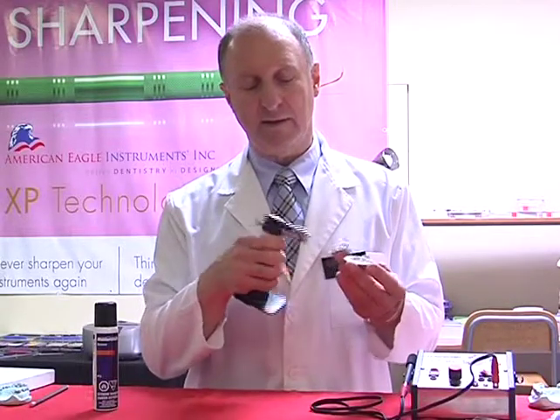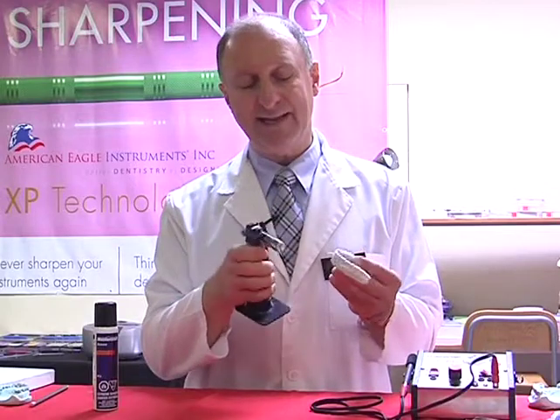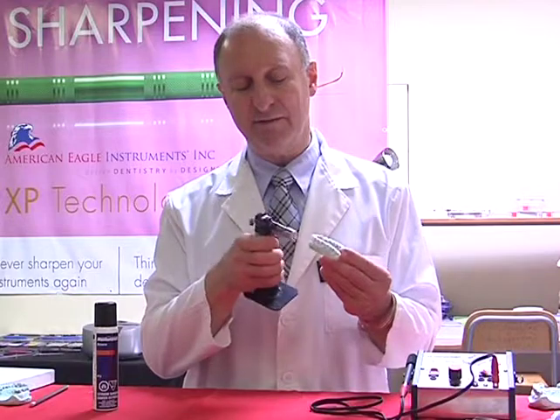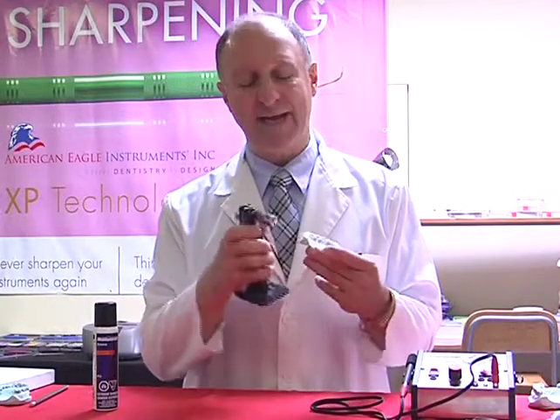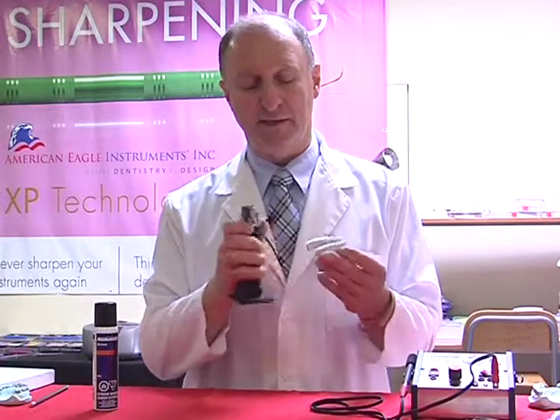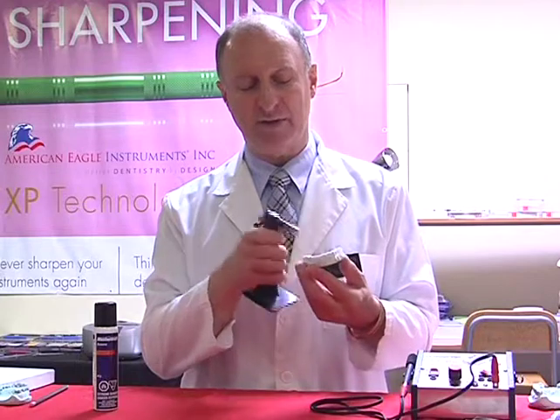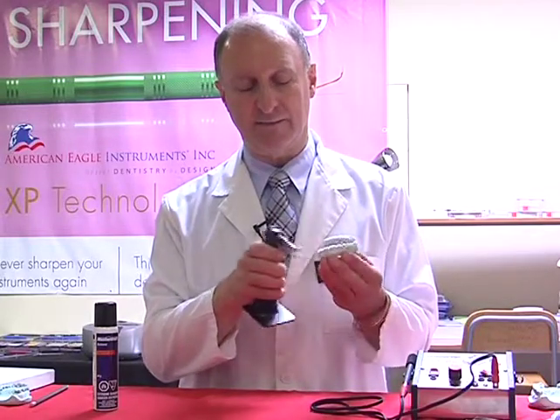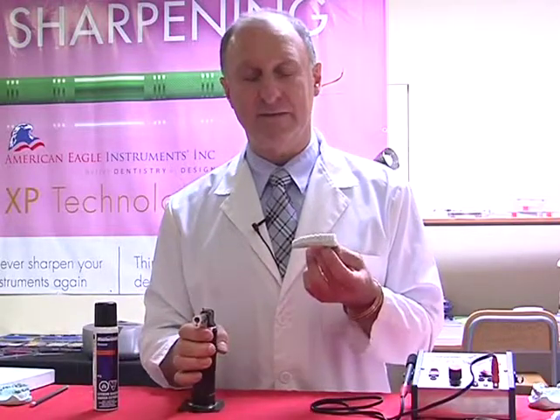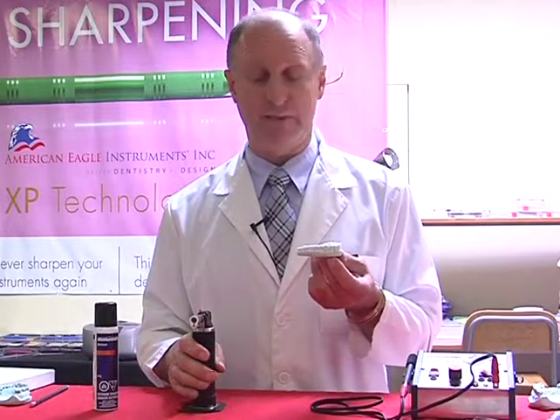and then I'm going to use a passing motion backwards and forwards, and this would slightly melt the surface of just the fine edges of the material, and that just gives a rolled edge. So when the tongue comes into contact with this, it feels nice and smooth, rather than feeling something that's sharp and obtuse to the tongue. I then let this cool, and we've now finished our bleaching tray in a matter of moments.